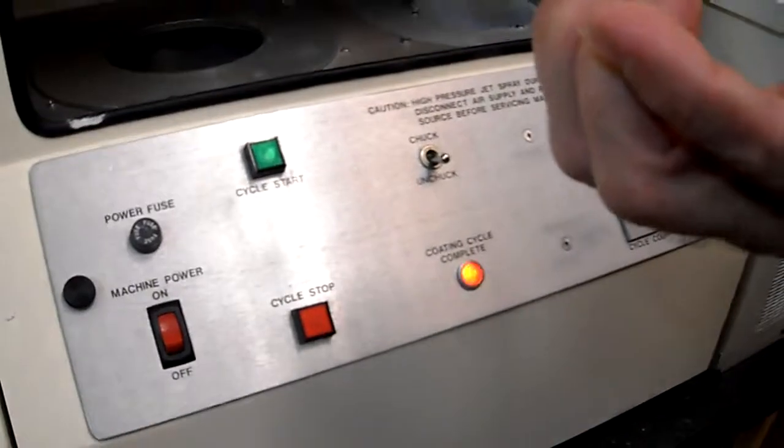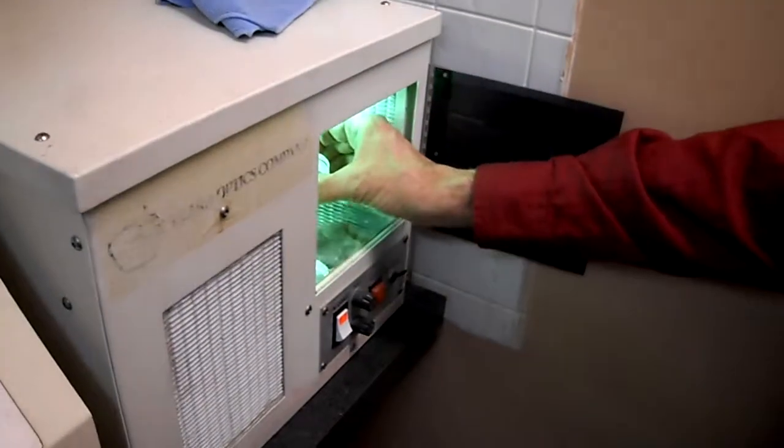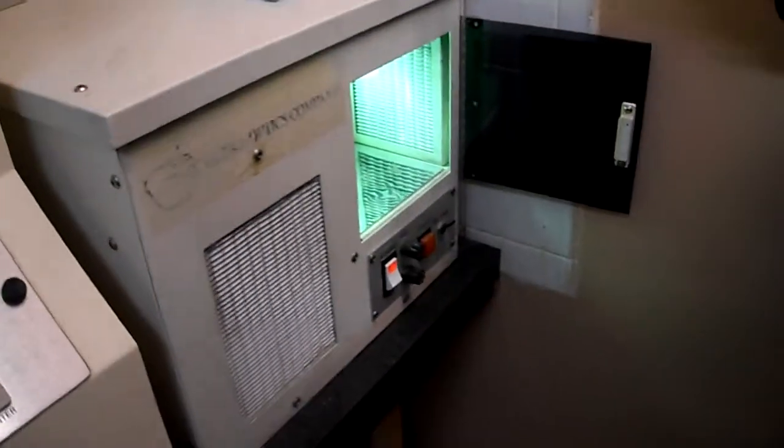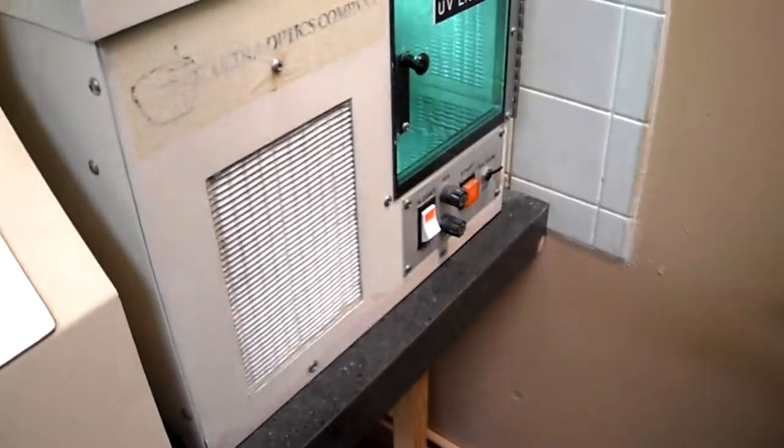Now I'm going to inspect it. It looks good. I'm going to put it in the lamp and hit Start.